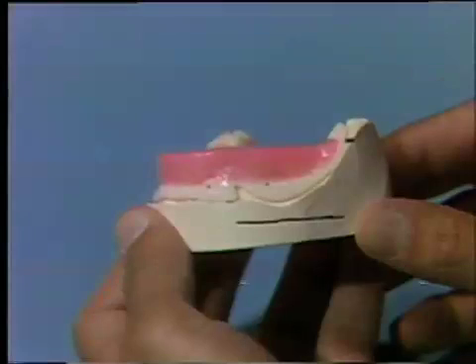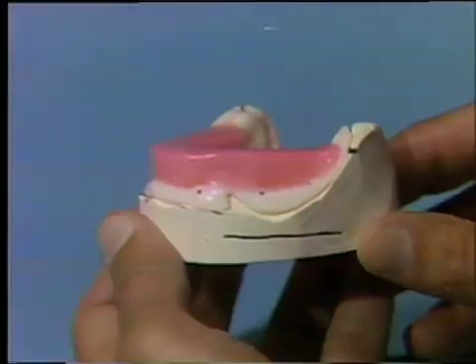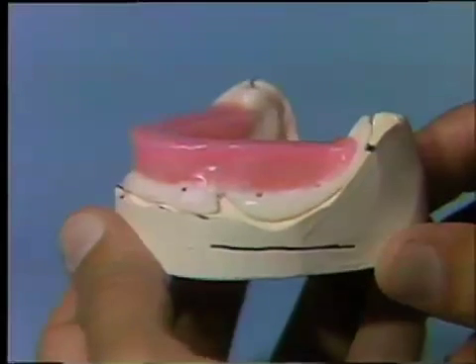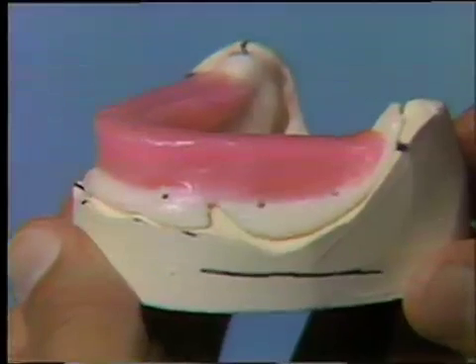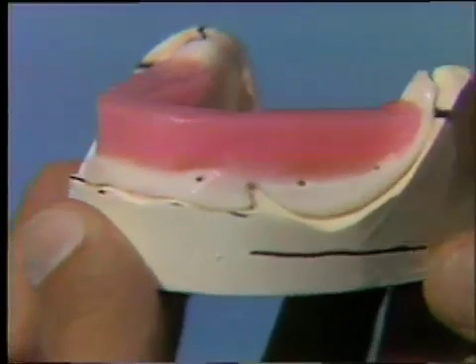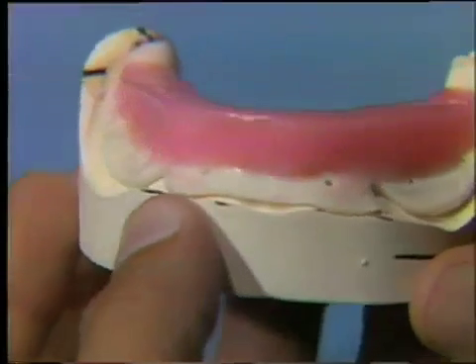Now you will complete the mandibular impression tray by placing approximately 12 pressure relief holes evenly spaced around the buccal and lingual peripheries. Be sure not to disturb the wax occlusal rim.